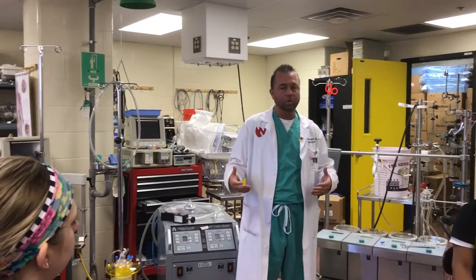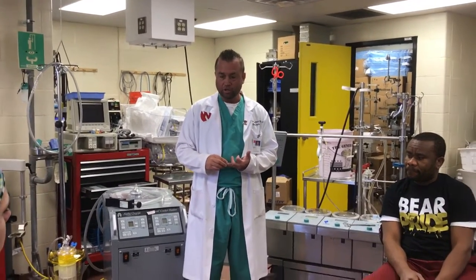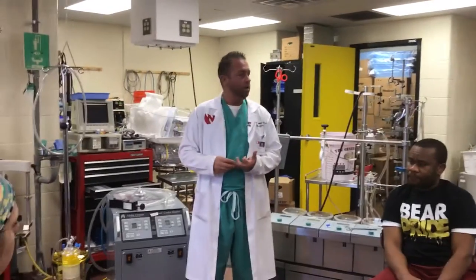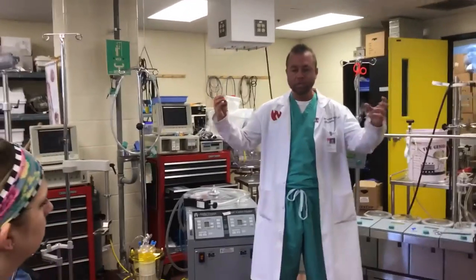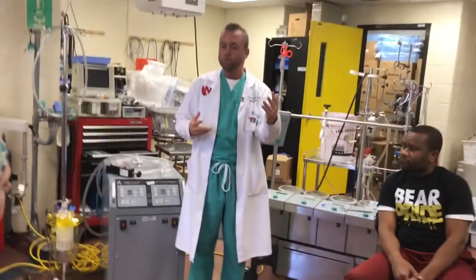This week we're going to progress through initiation to the maintenance phase, and next week we'll culminate with the termination phase. Recapping from last week: in the initiation phase, we first bump up to the cannula, check the arterial cannula, then communicate with the surgeon when he asks us to go on.